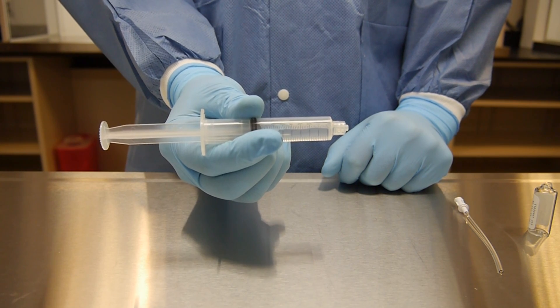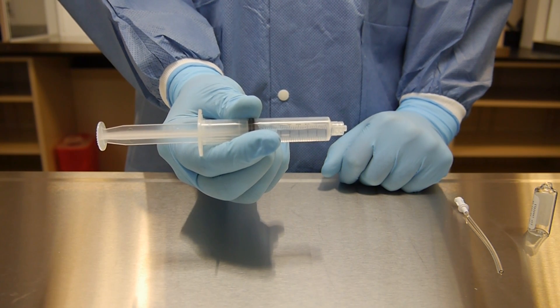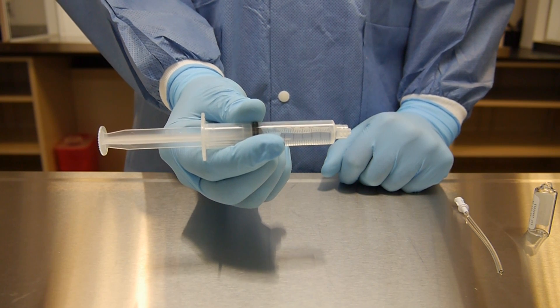If using a syringe cap, remove air bubbles prior to capping. If attaching a new needle, remember to prime the new needle and remove any air bubbles.